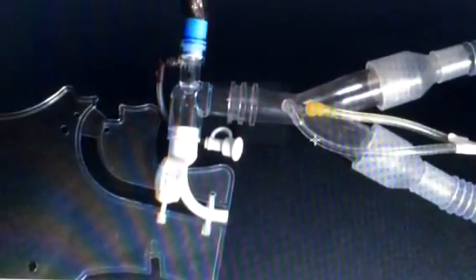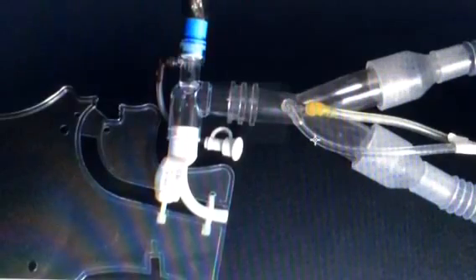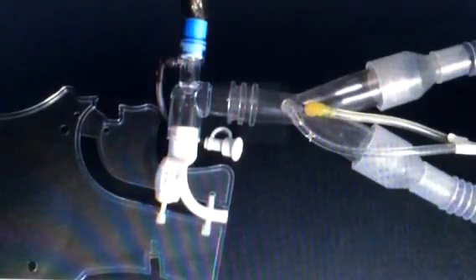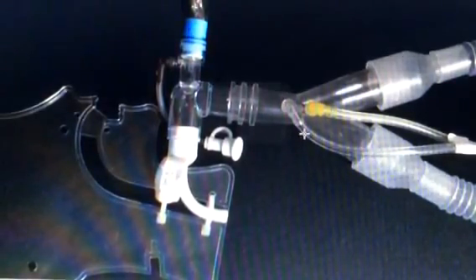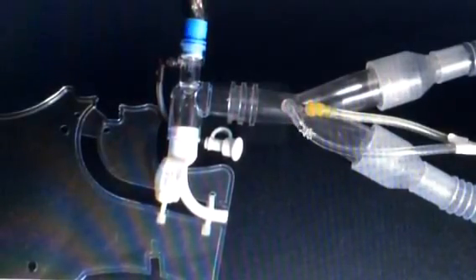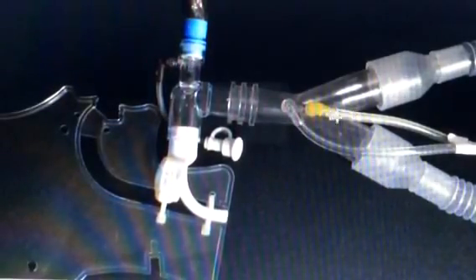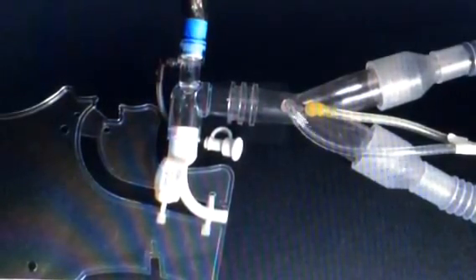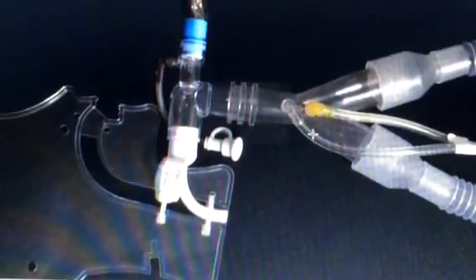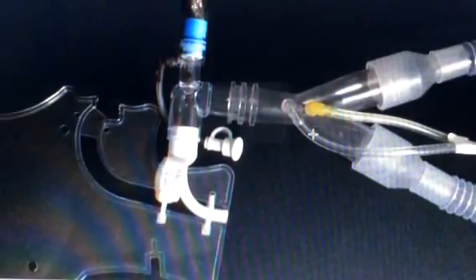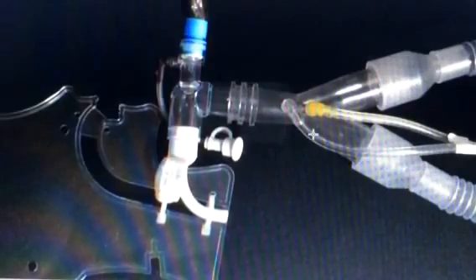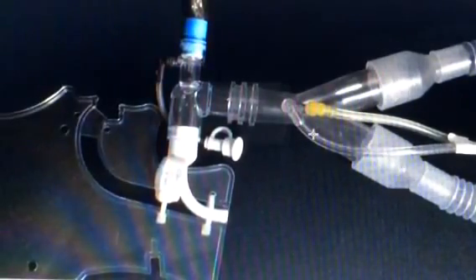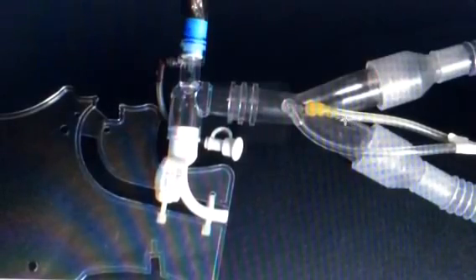Now, this may not seem like very much of a problem, but it is incredibly important. Bad things are going to happen if water droplets get in these tubes. If one of these tubes gets disconnected, it won't know how much pressure it's giving to the patient. And if they are on a pressure type of breath, it won't know when to stop. So it'll keep pushing and pushing air in and over-inflate their lungs and apply too much pressure. If the other tube gets kinked off or gets a drop of water in it, it will think they're trying to breathe really fast.